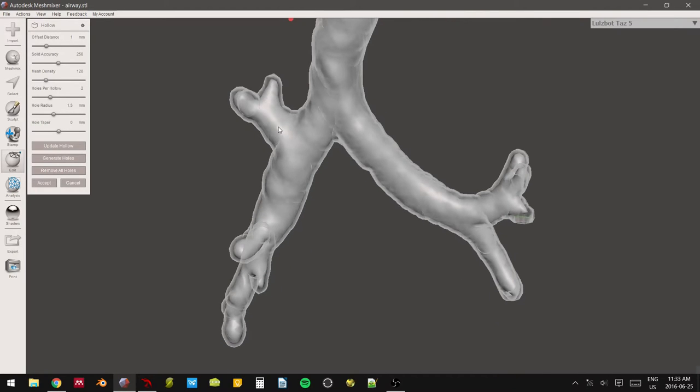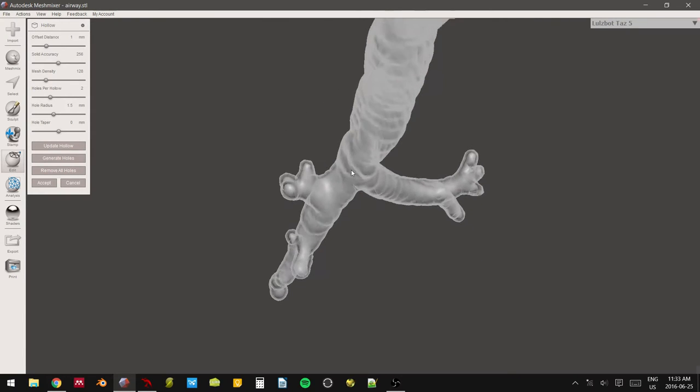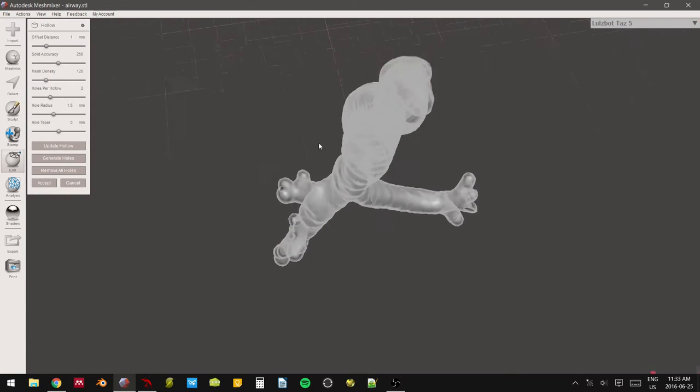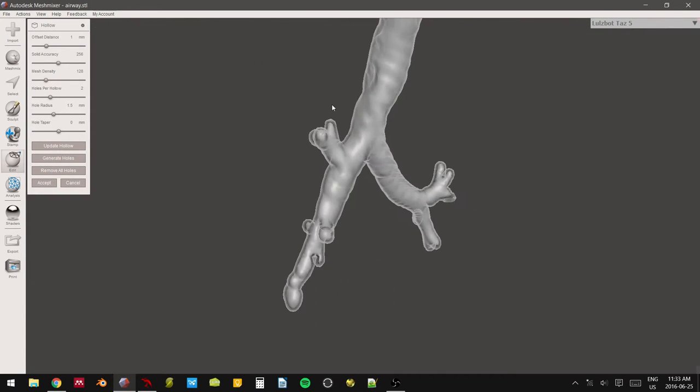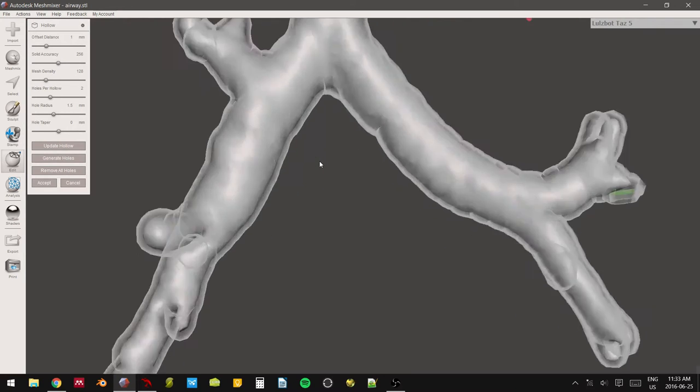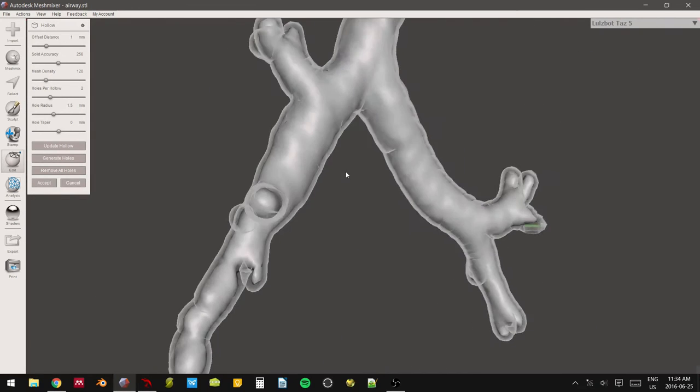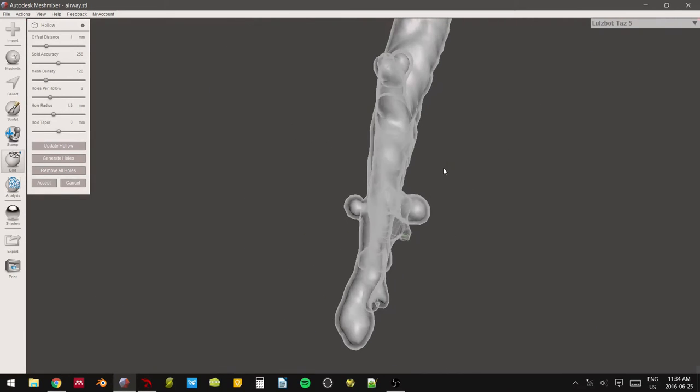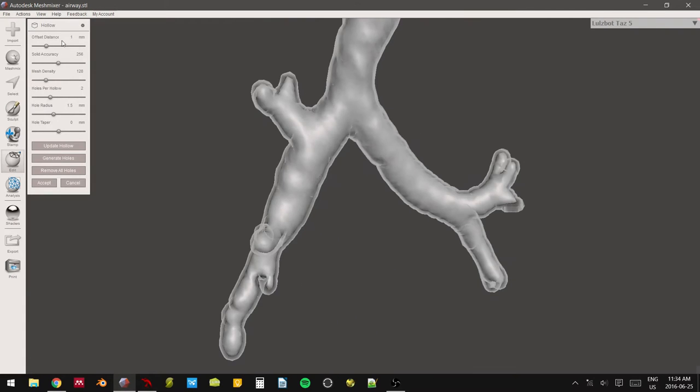So again, it depends. The accuracy really depends on your purpose. And it's something for you, the surgical team and the educational team to discuss how much accuracy is deemed necessary. Like sometimes this will be okay for educational purposes. But for today, I was pretty happy with the way that two millimeters look.